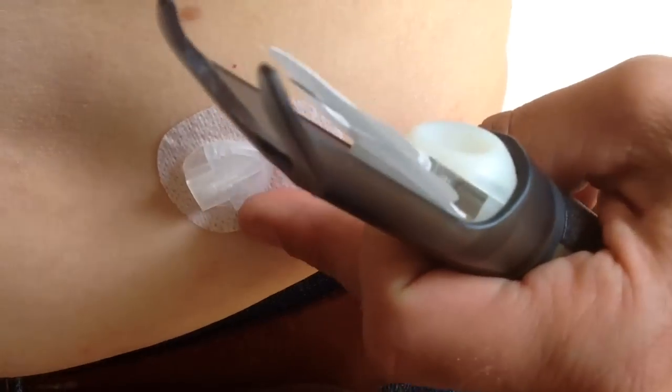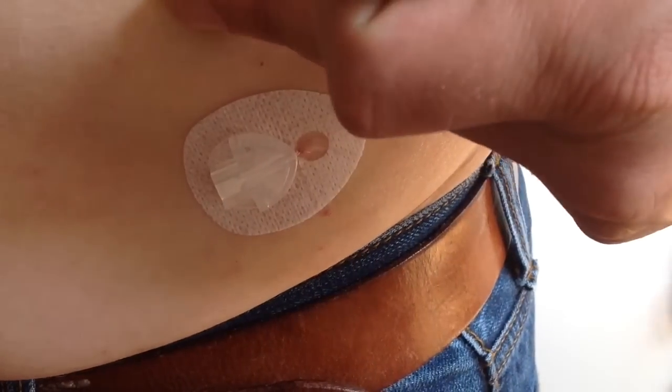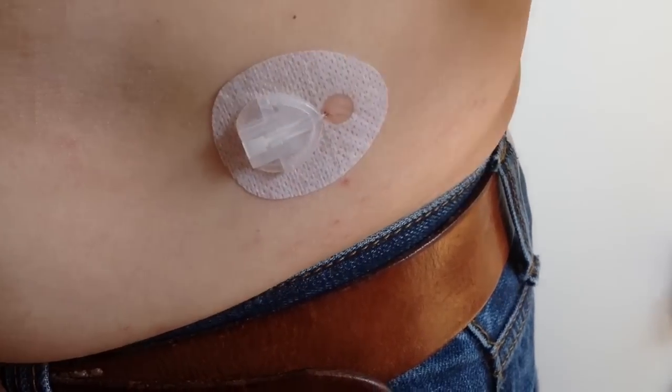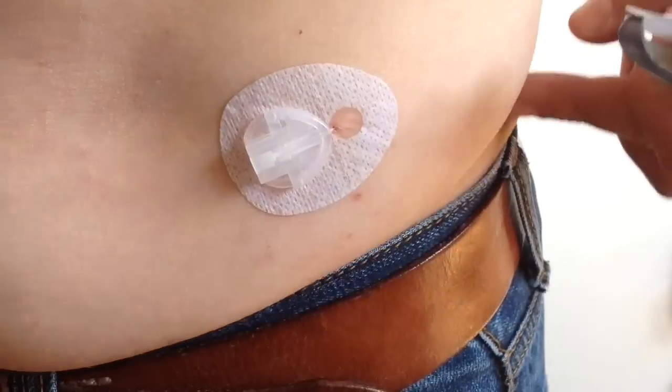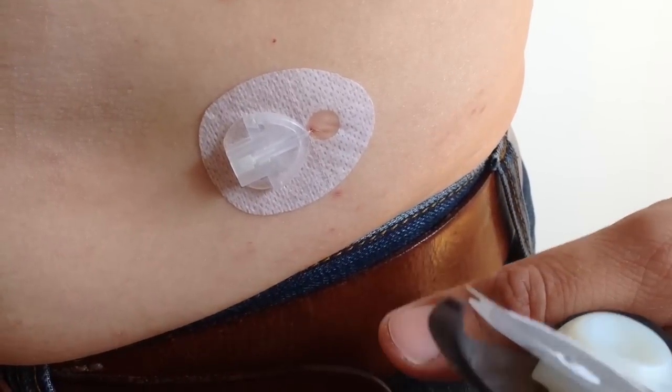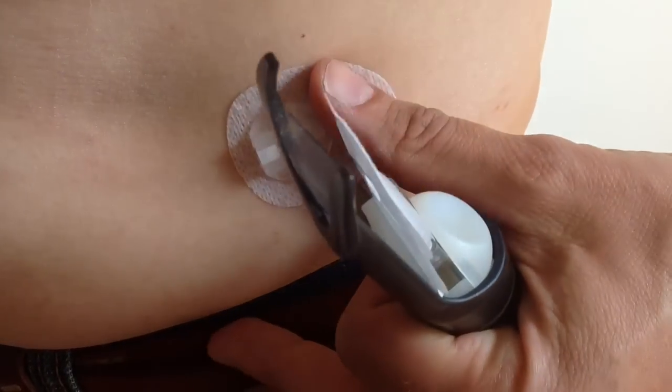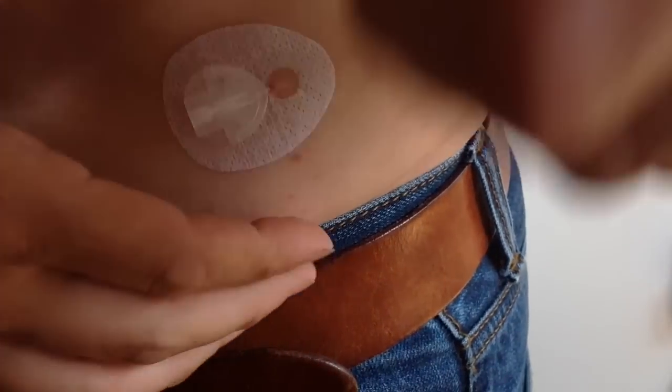And what I tend to do is I'll do a line around at one level. And then I'll move up and I'll do another line around. I tend to get, I don't know, three lines of sets around the sides towards the spine. And it gives me perhaps a month on each side. So I can give the other side a whole month's rest. And so here we go.